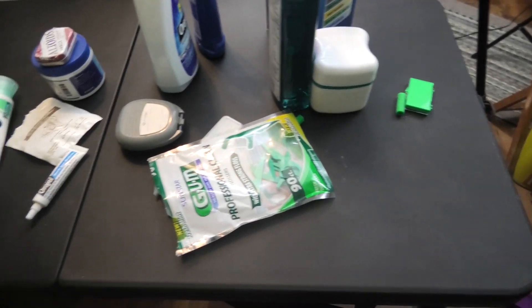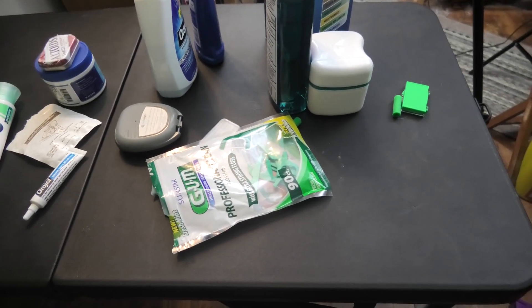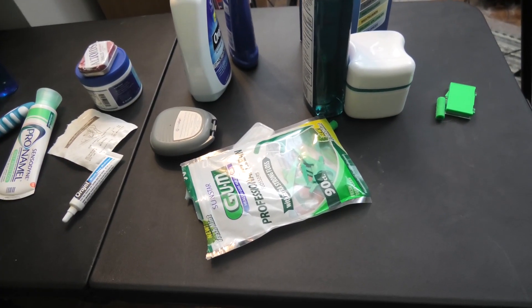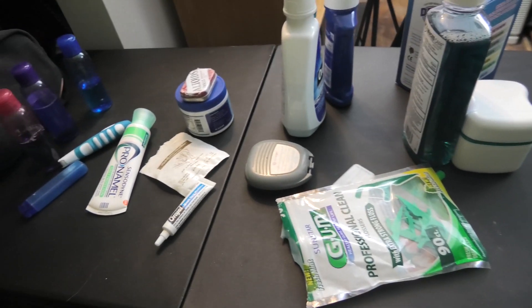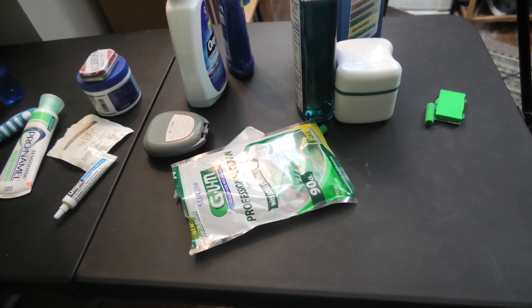Here are some of the important things to have when you have Invisalign. We're going to go over each one of these real quick. And at the end of this video, I'm going to remove my Invisalign as a special request from Anna. So if you don't want to see that, you can skip the very end of the video. Alright, let's get started.